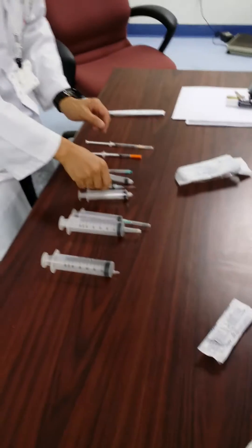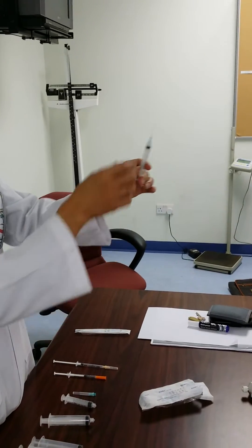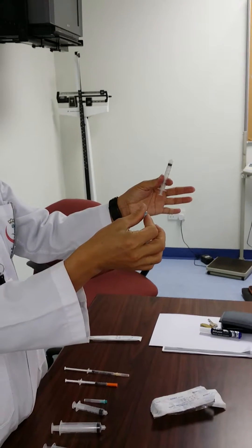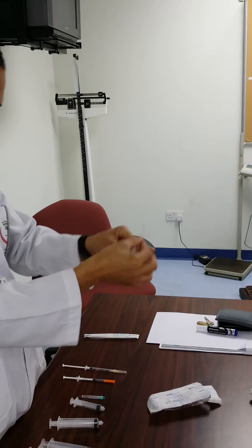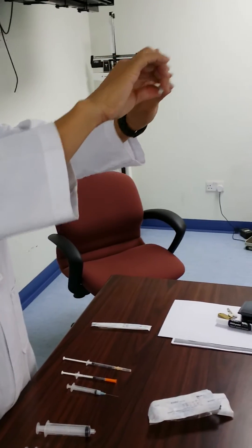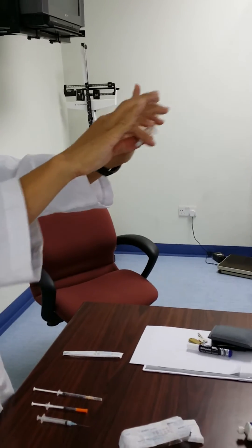The next one is the 3ml syringe. With 3ml syringes, you can also change the needle. We also have 5ml syringes — with 5ml syringes, you can also change the needle.